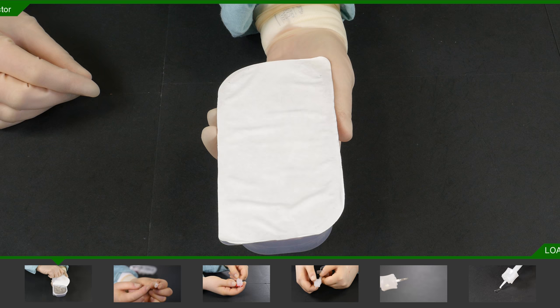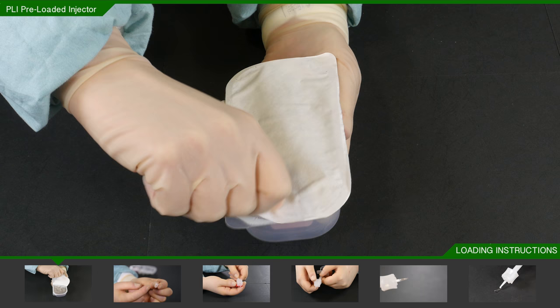Remove the seal from the non-sterile outer tray and hand to the operating assistant, making sure that the inner tray remains sterile.